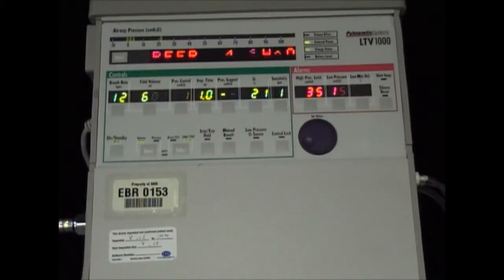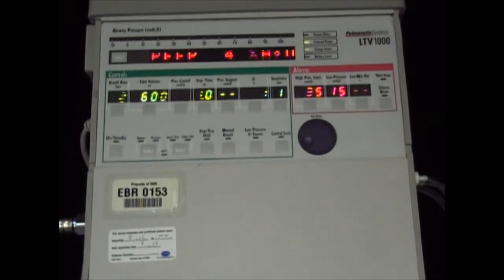When using the speech cannula, we are able to maintain our PEEP level. As you can see, our PEEP is set at 4 centimeters of water pressure, and our baseline is coming back down to 4 centimeters of water pressure. We do not recommend using the speech cannula on patients requiring higher than 10 centimeters of water pressure.